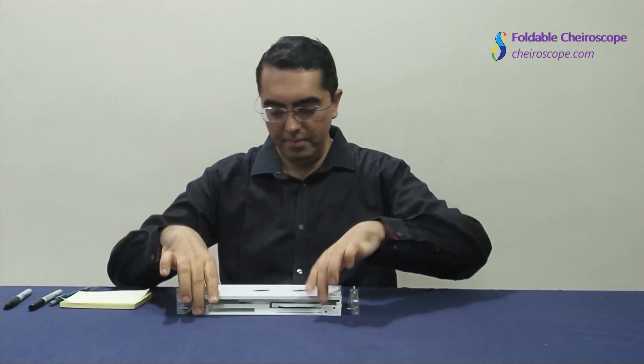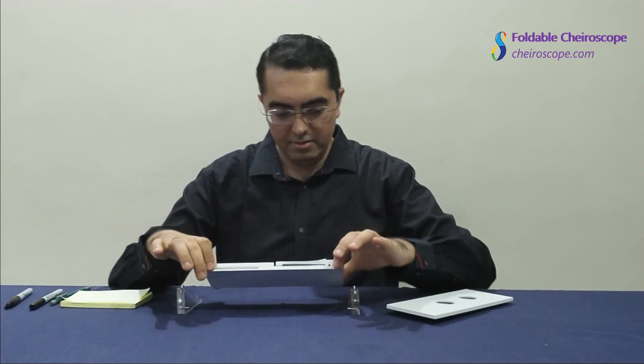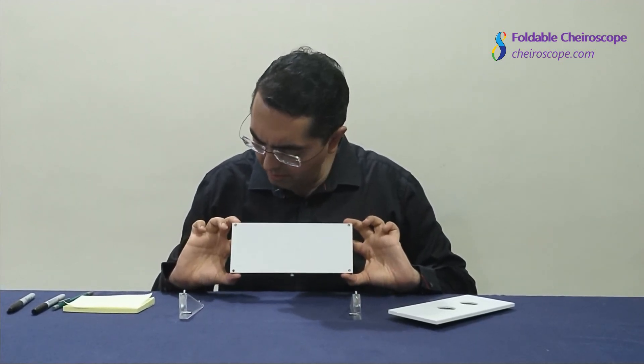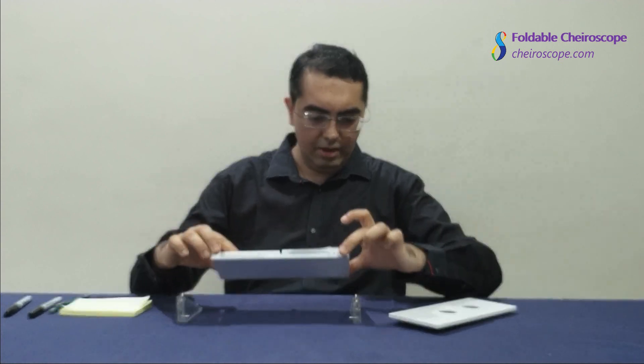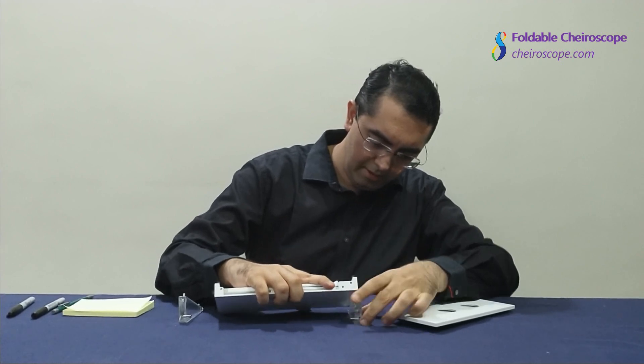We are going to place them this way and set this lens plate aside to make it easy to mount. Next, take the base that has four holes on the bottom and they go right into the dowel pins, just like that.